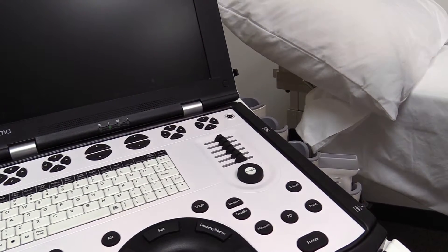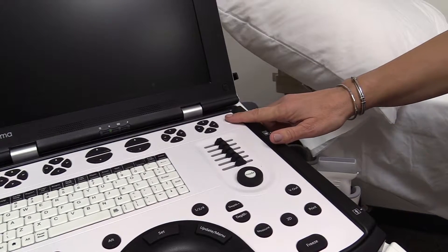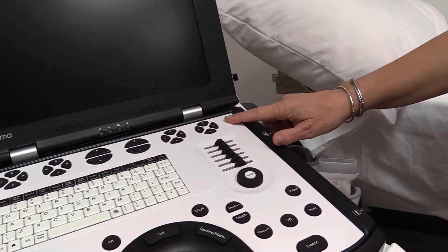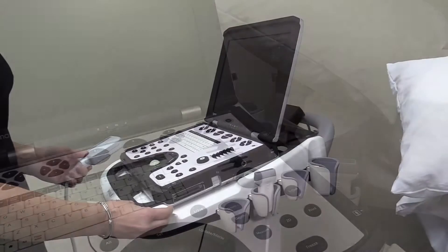To begin, press the on-off button, which is located on the upper right-hand corner of the control panel.